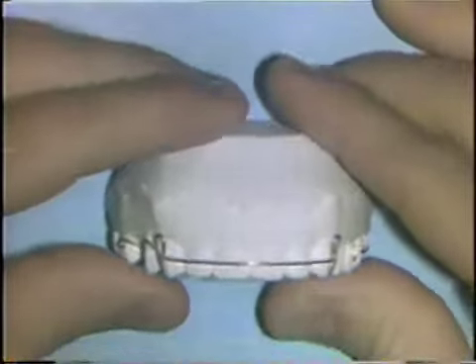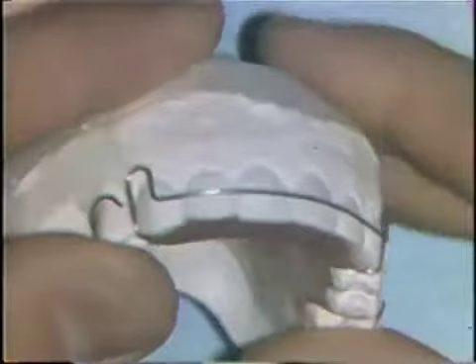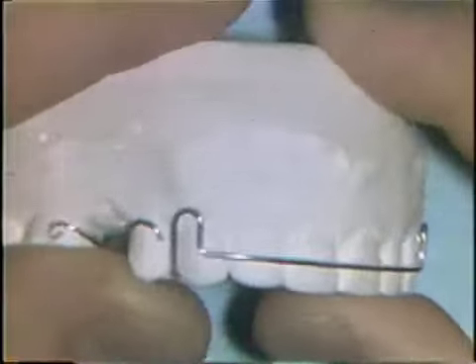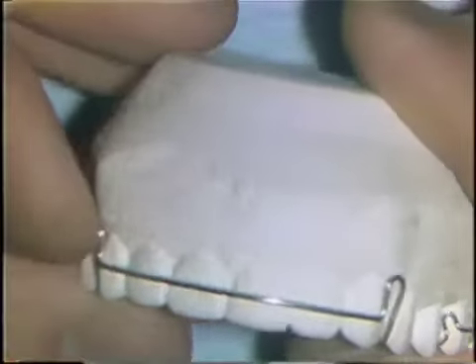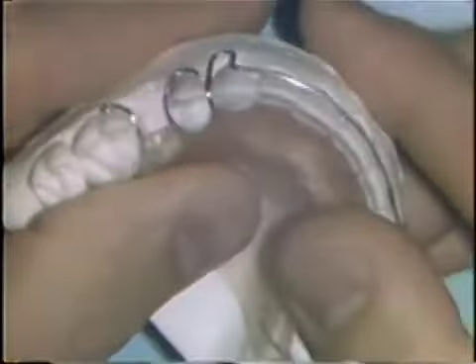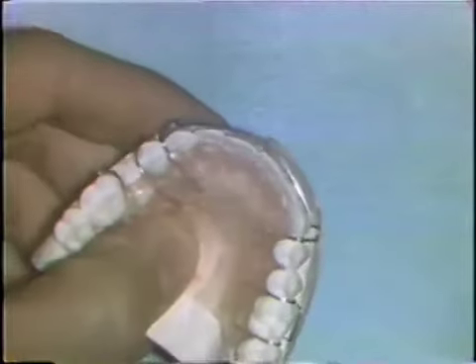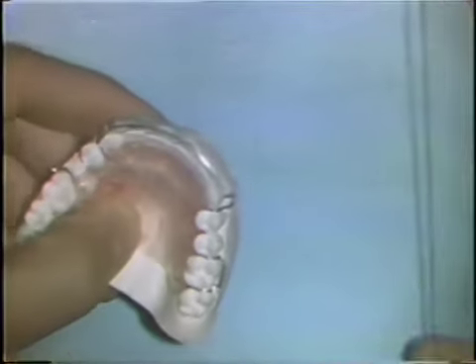The Hawley labial wire is a smooth, continuous curve that contacts the middle one-third of every anterior tooth. The loops are one half the width of the cuspid and are oriented to be approximately a millimeter off the tissues. The wire extends through the occlusion in close contact with the cuspid and first bicuspid and courses into the acrylic for retention. Hawley labial wires are constructed usually of 0.030 diameter stainless steel wire.